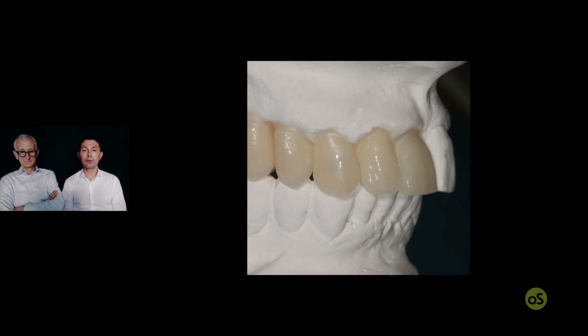For this reason, I don't like to remove a lot of incisors at the same moment. I prefer to remove only a couple of incisors, and with the help of the others, I place in position the new commercial teeth with the right inclination, or the same inclination.